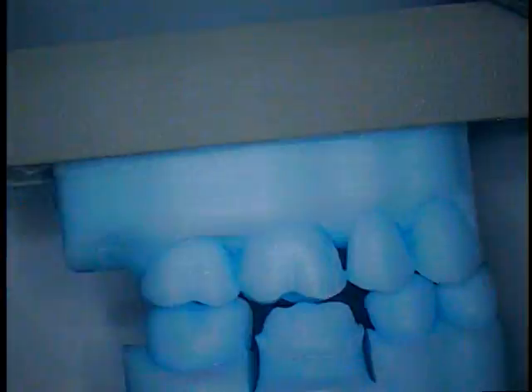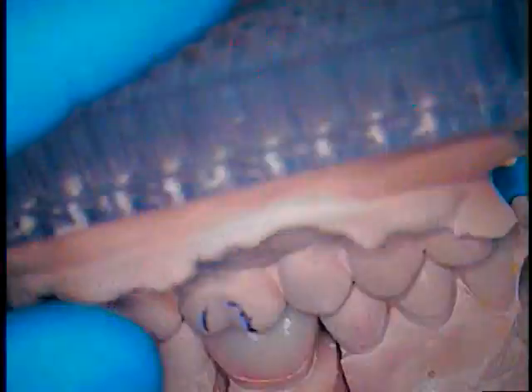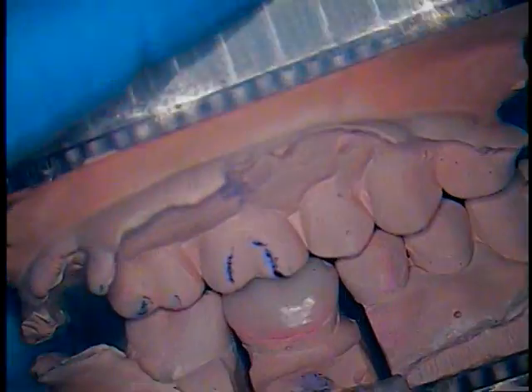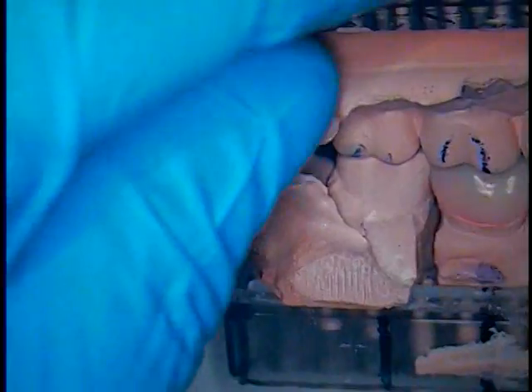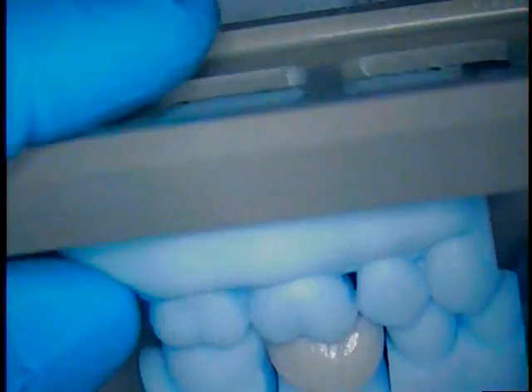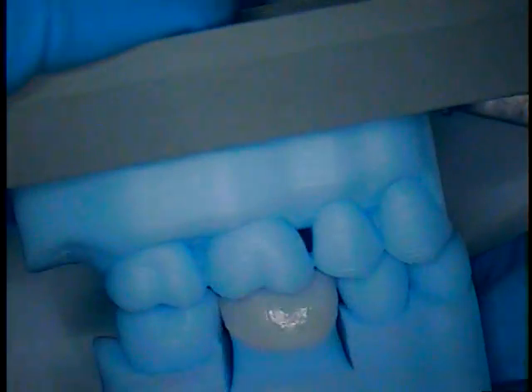This is all about man versus computer. I want to say we worked on our temporaries for 4 sessions. We did other things as well, but basically this is the culmination of the man-made acrylic resin crown made indirectly on laboratory model work and then in the Typodont. And of course our scanned computer-assisted design, computer-assisted milled crown, virtually made.